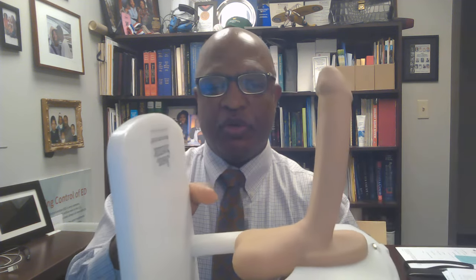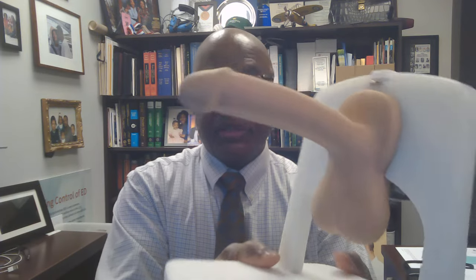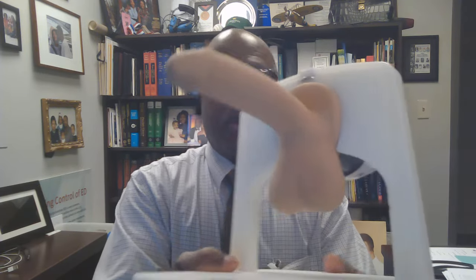How many pumps does it take? It depends on how long and wide a person's penis is. But as you pump it, the device will get erect. Some people would prefer to make their penis really firm, and others would say you don't need to make it as hard as you could. But once this implant is up, it doesn't matter what you do — you can lay on your back, on your side, be in your bedroom, the basement, the ocean, the woods. It doesn't matter; this thing will work wherever you are.